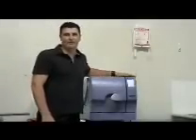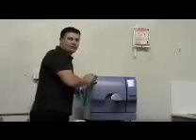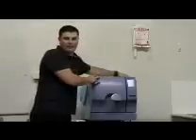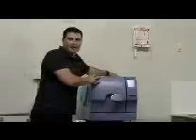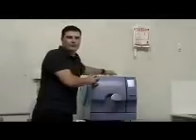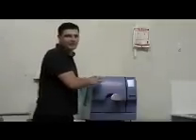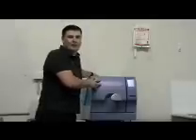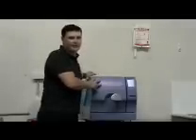Hello and welcome to your Cominox instructional DVD. By now you should have your unit on the bench, ensuring that it is on a sturdy bench with adequate air flow behind and around the unit. By having insufficient air flow around your steriliser, you could introduce problems later on. So please be sure when setting the steriliser on the bench, you do allow for adequate air flow in and around behind the unit and the front.